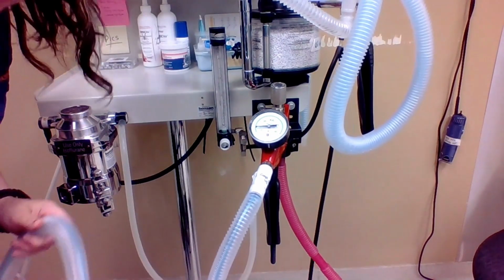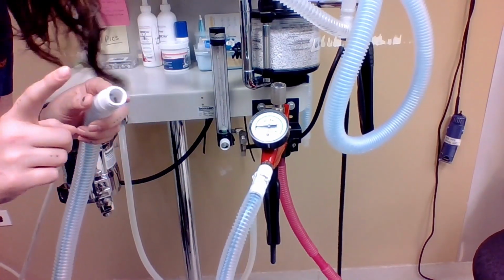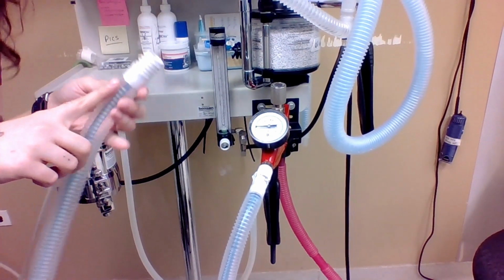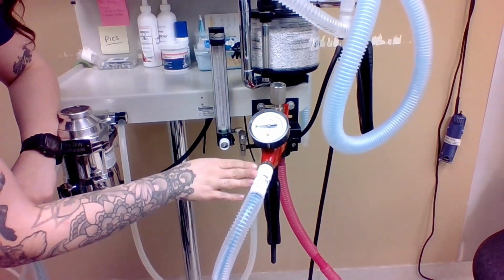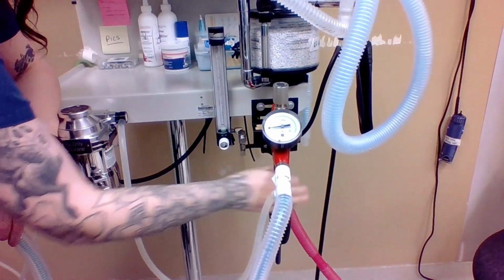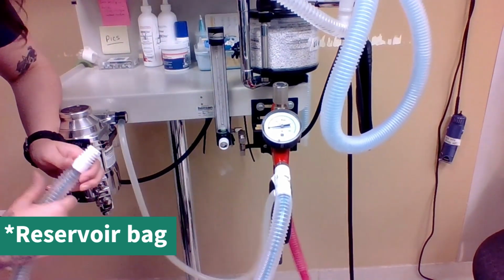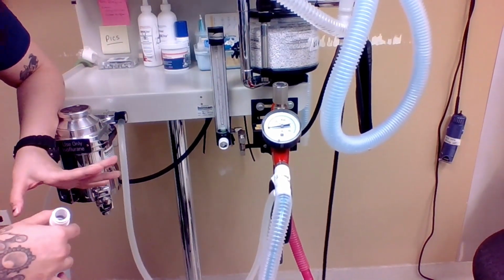That's that inner blue hose as well again. This goes to our endotracheal tube to the patient. The patient will exhale. It'll go through the clear tubing system and then back through our system, through the rebreathing bag, and then out through the scavenger hose. And that is the Bain non-rebreathing oxygen flow.